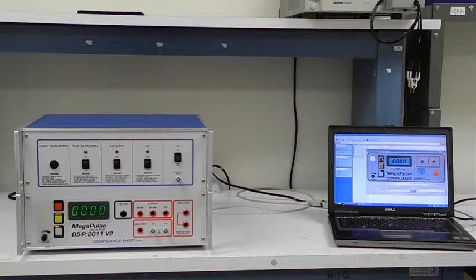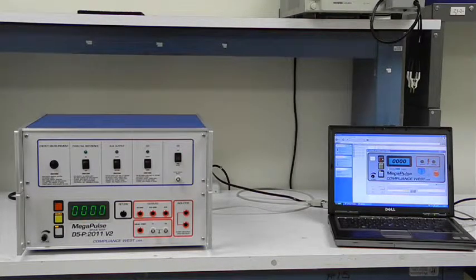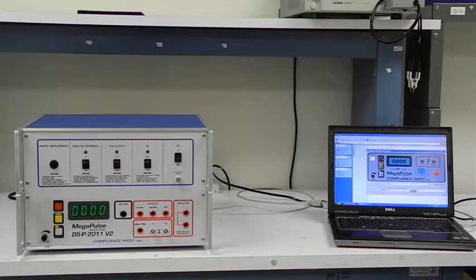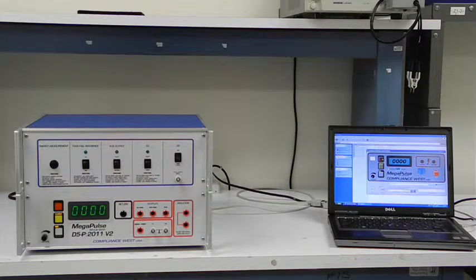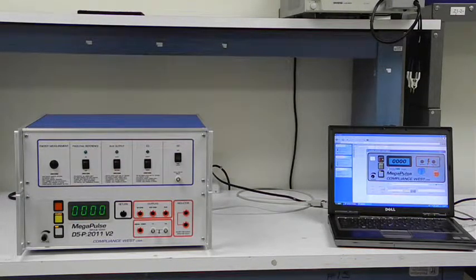A passing result will show that the energy to a 100 ohm load is reduced by 10% or less when the equipment is connected.